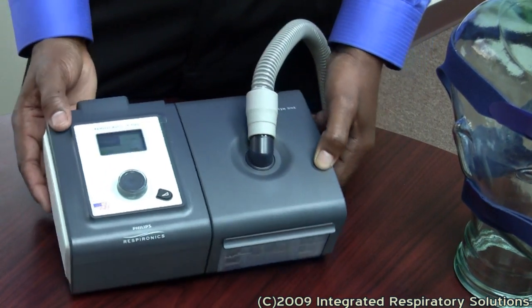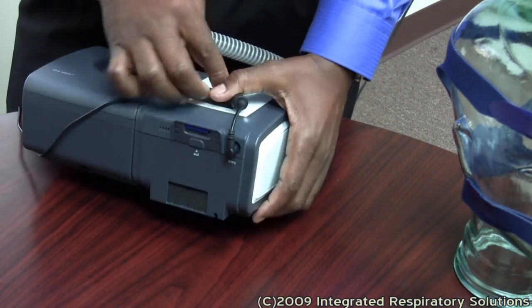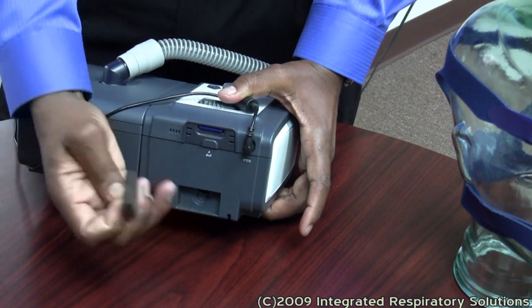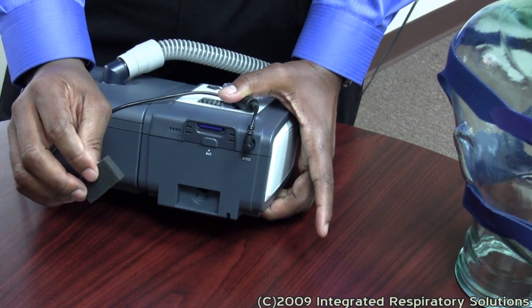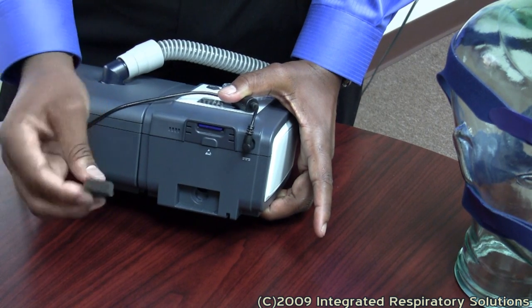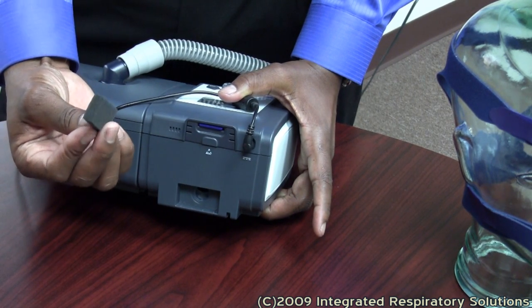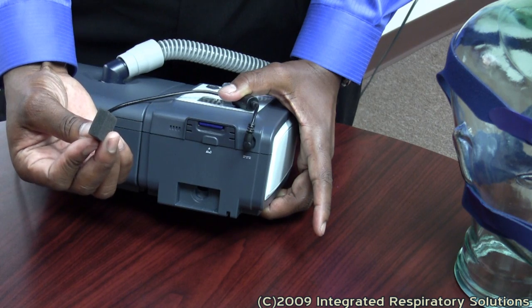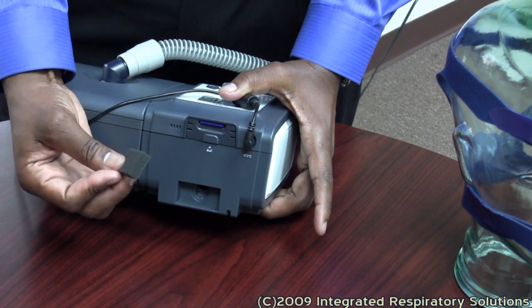On the back of the device, your filters are right here. This is a pollen filter. This particular manufacturer uses a pollen filter as well as an ultrafine filter, which is not shown here in the video.